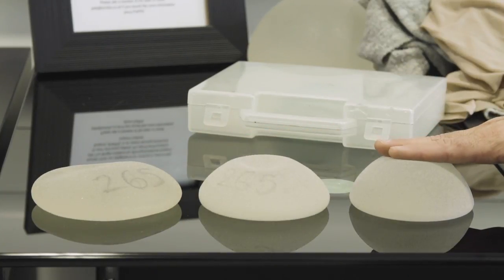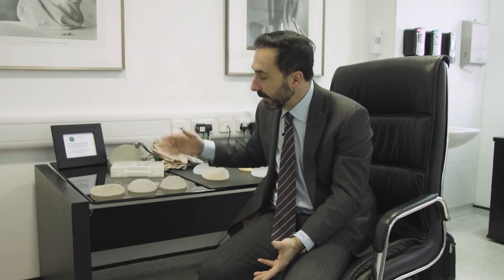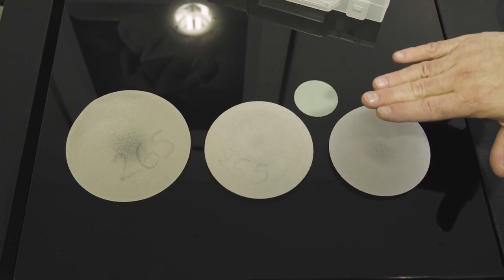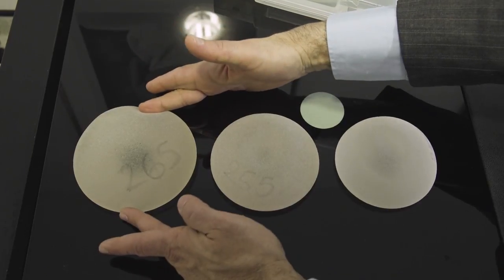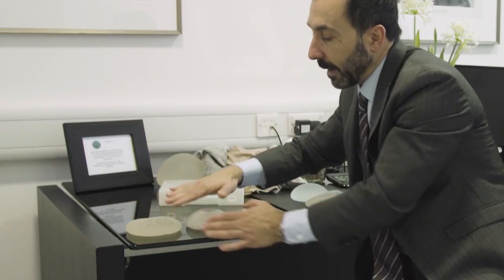The other thing I want to talk about is the profile of implants — a slightly abstract concept, but I'll make it as simple as possible. These three implants are roughly the same size in terms of volume, but they look different. This one here looks wider than this one, and this one looks even narrower. This is a low profile implant, this is what we call a full profile implant, and this is an extra high profile implant. Basically, for a given base or footprint of the implant, you can displace the volume in height accordingly.